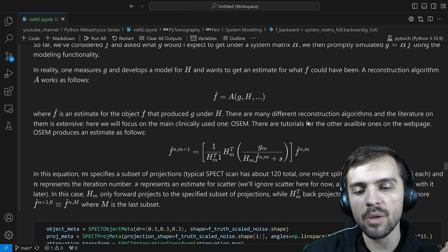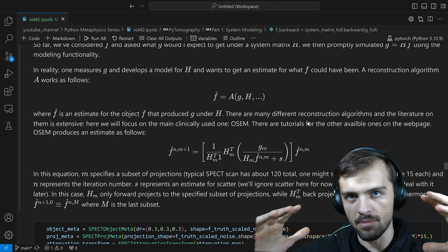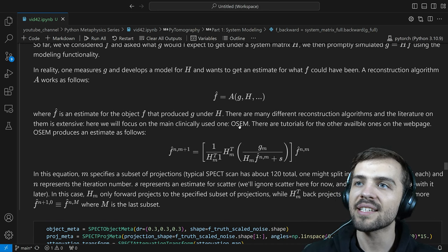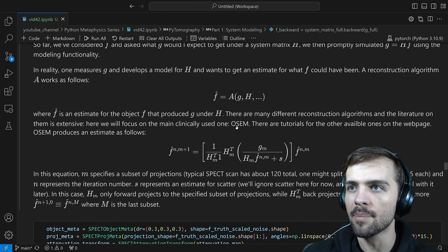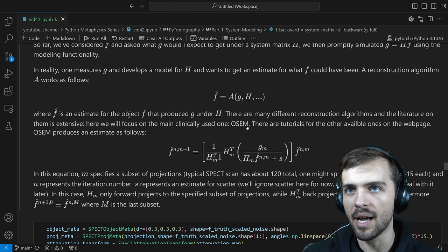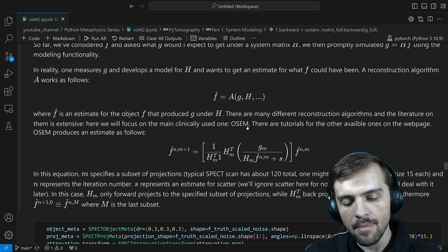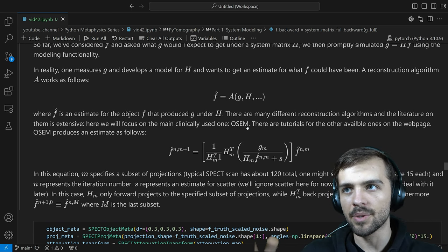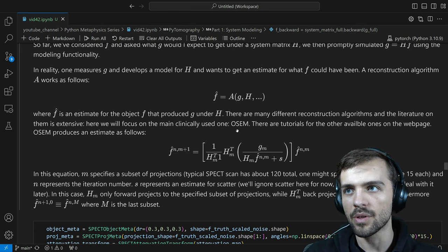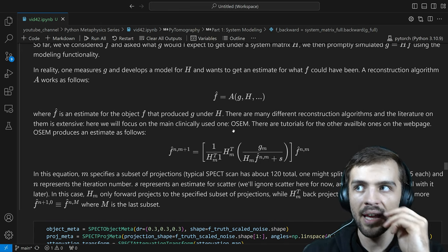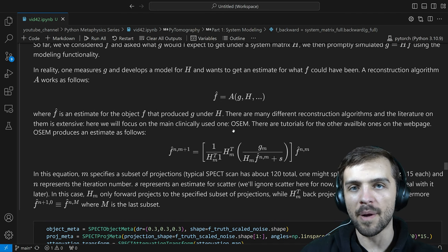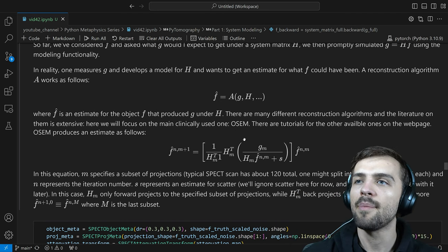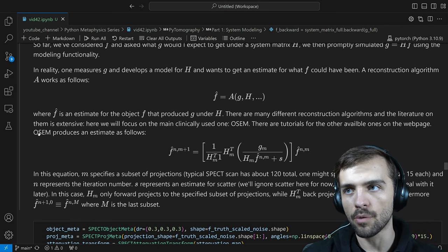The main algorithm that works really well for SPECT, due to the random Poisson nature of the data, is OSEM — Ordered Subset Expectation Maximization. This is the most widely used reconstruction algorithm. Anytime somebody gets a SPECT scan in real life, this is likely the algorithm used for reconstruction. PyTomography has many newer algorithms on the webpage, but here we'll focus on OSEM because it's so popular.